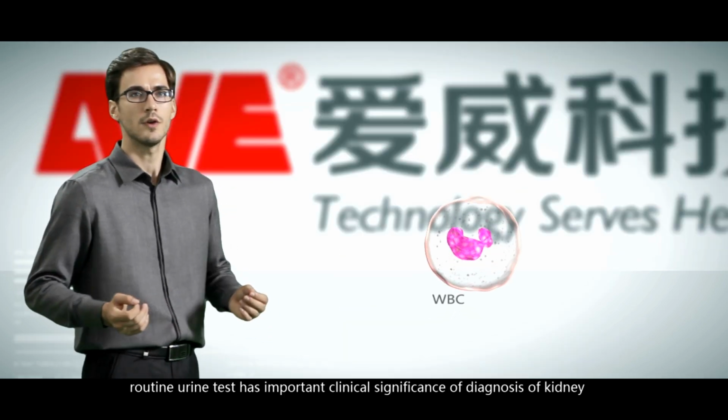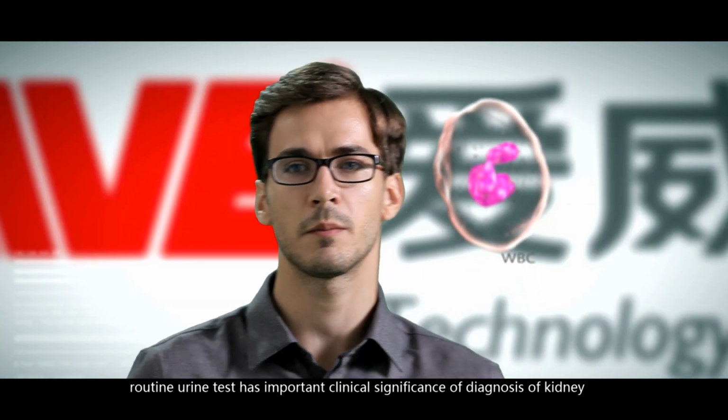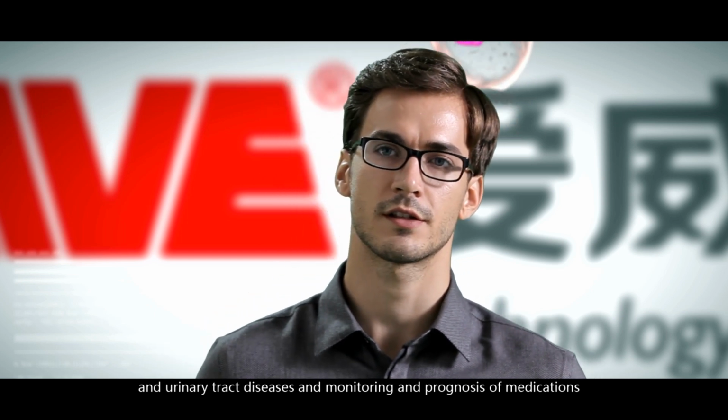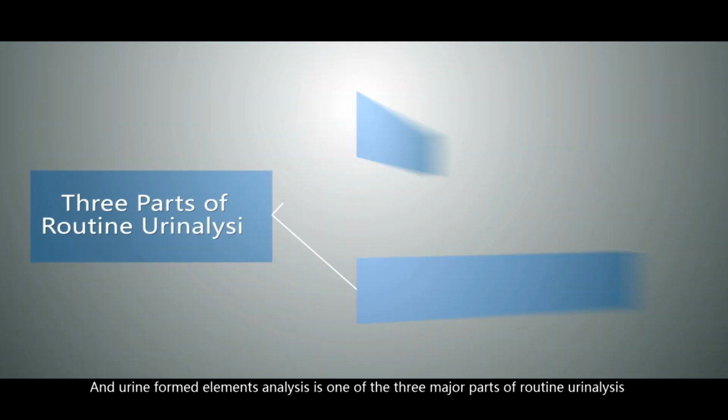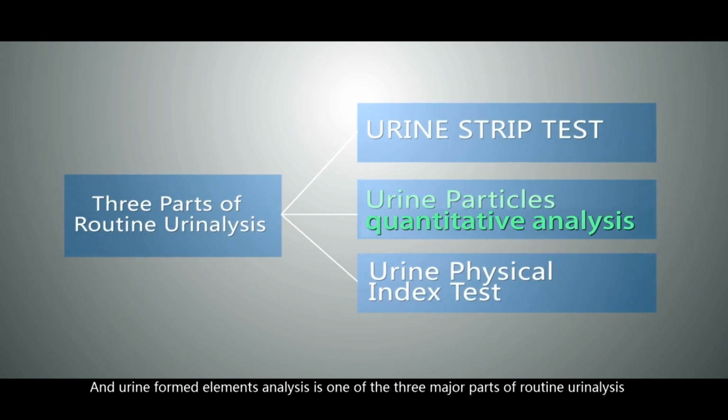As we all know, routine urine test has important clinical significance on diagnosis of kidney and urinary tract diseases and monitoring and prognosis of medications. And urine-formed elements analysis is one of the three major parts of routine urinalysis.